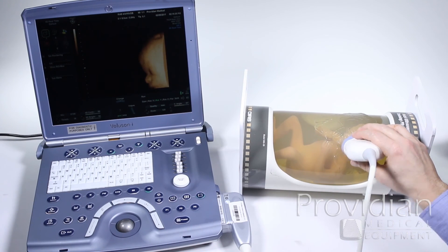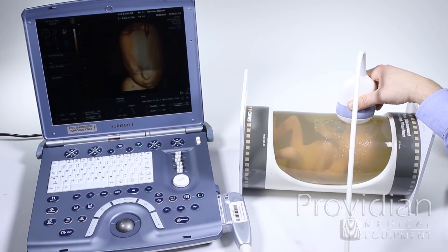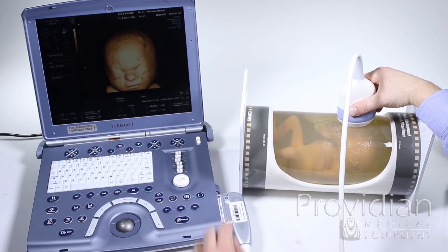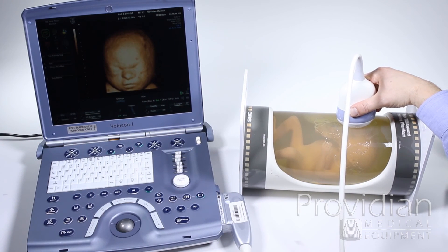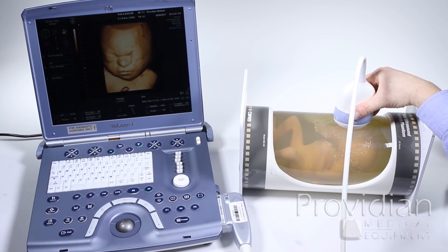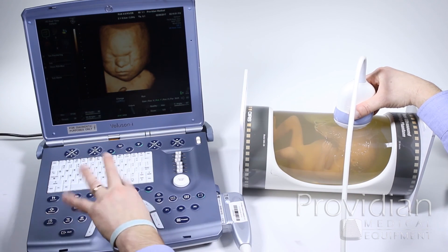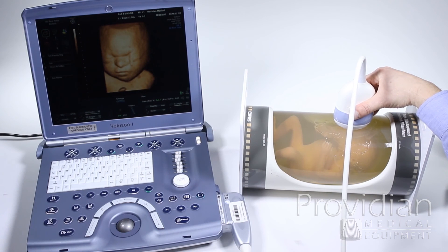If I made those changes and totally screwed it up, I can click the I button and it's going to take me right back to the beginning — changing all those XYZ controls back to the original settings. So feel free to use all these controls; you can always go back to that.